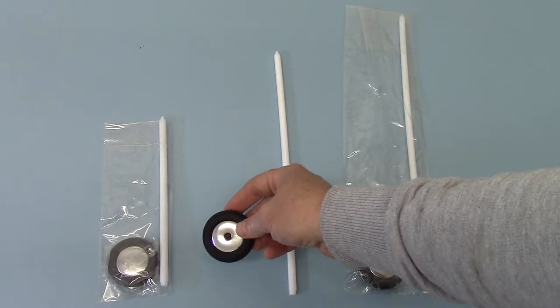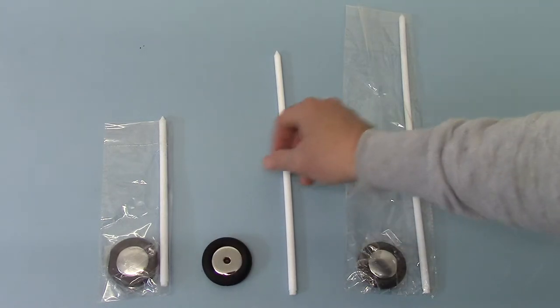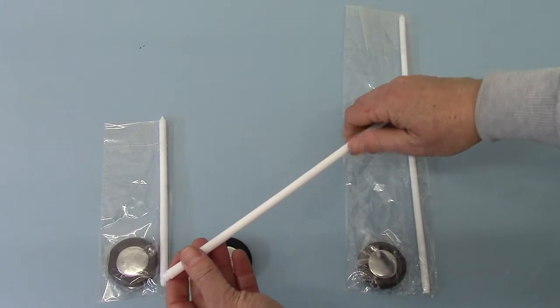The centerpiece can go through a normal sterilizing solution or autoclave system. The handles are all made of vinyl. They are a good thickness.